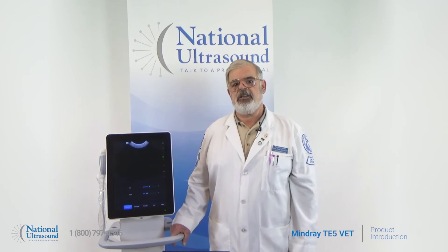Overall, the Mindray TE5 vet ultrasound system is the perfect solution for the veterinary practice, including performing consistent abdominal, small parts, and musculoskeletal exams on small and large animals. It encompasses cutting-edge technology to provide clear and precise diagnostic imaging with a small footprint and dedicated smart workflow protocols. This system is the ideal diagnostic tool for your practice. Contact us today to schedule an online demo with your National Ultrasound Sales Rep.